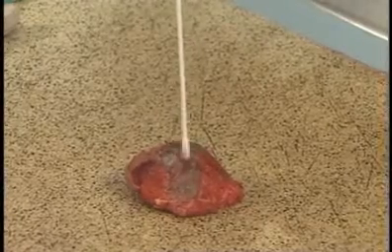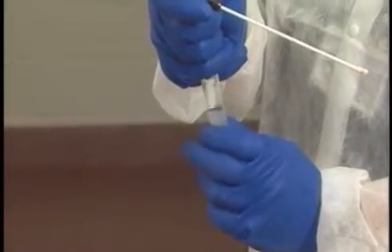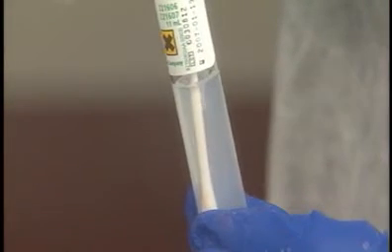Withdraw the swab and remove the cap of the Portagerm tube, being certain to avoid tilting the open tube, which will release the gas lock. This gas lock prevents air from entering the tube. Insert the swab down into the transport medium. Leave the swab in place and firmly replace the cap. Do not refrigerate or chill this tube after it is inoculated.